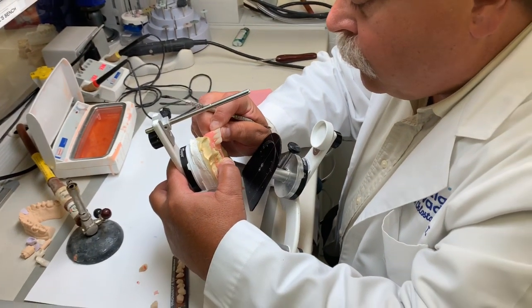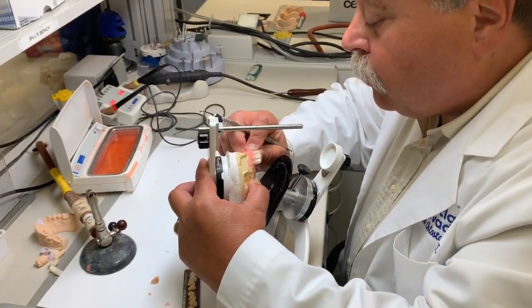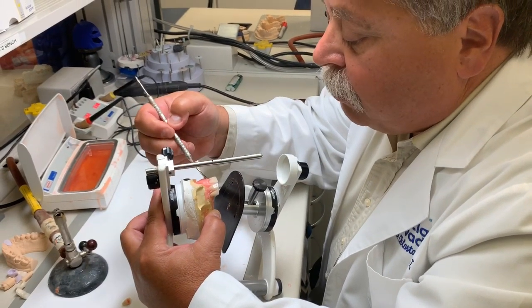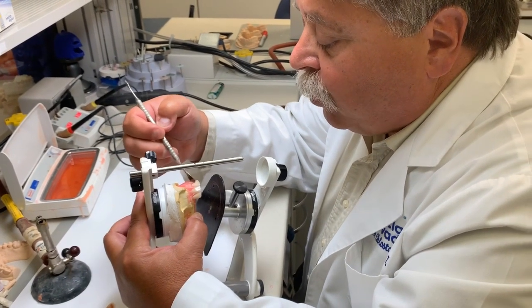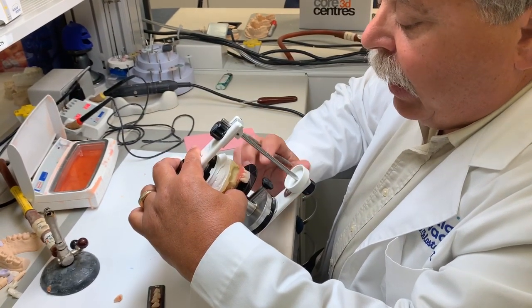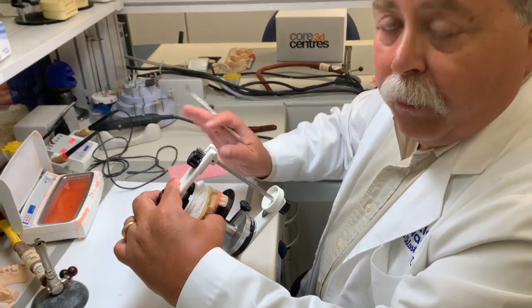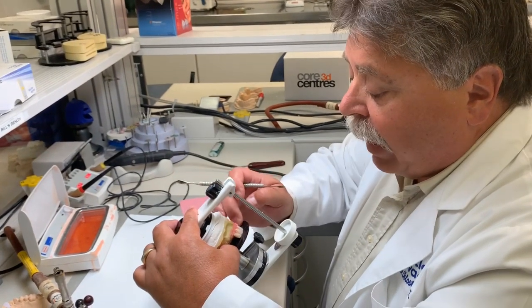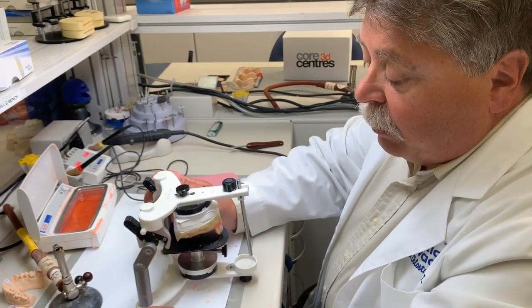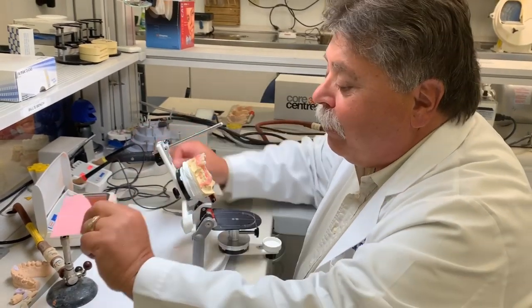So how long does it generally take to create a wax try-in denture, a denture out of wax? On the average, about 45 minutes to an hour. So that's a lot of manpower being put into there, a lot of man hours. A lot of man hours. It depends on how creative you want to be. Right. Or if we're just lining them straight up across, the time is cut down. But usually patients don't want to see that. They want to see a little bit more of a nuance, but they are available.